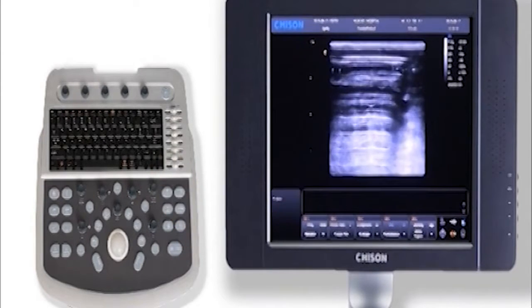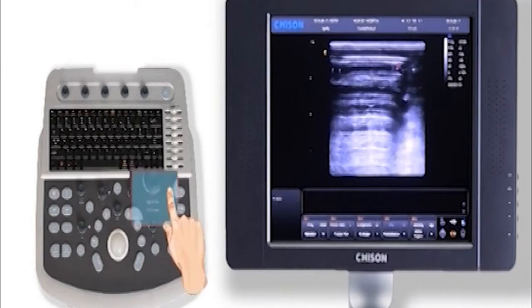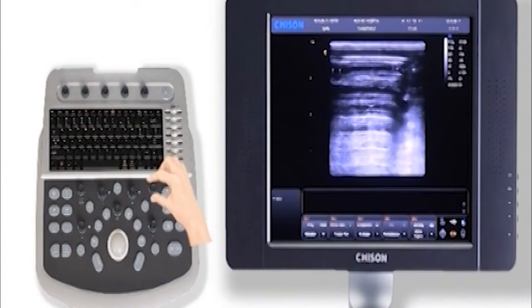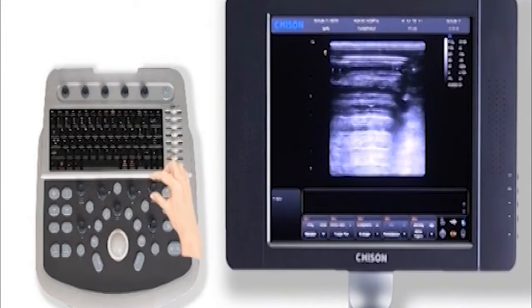Then rotate this key to change focus position, located at the interested image area.